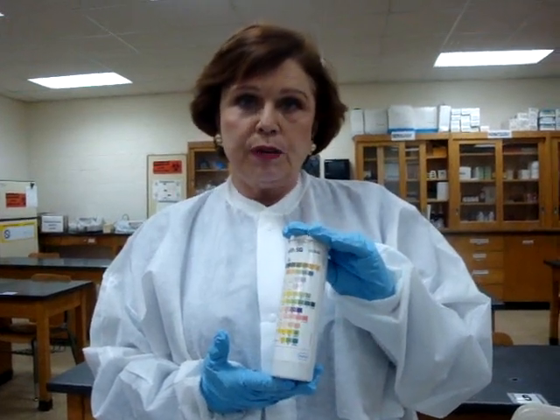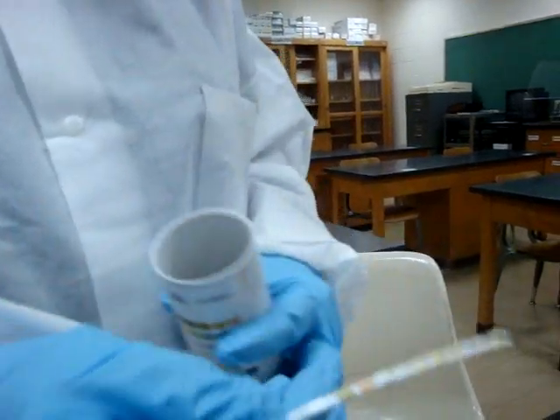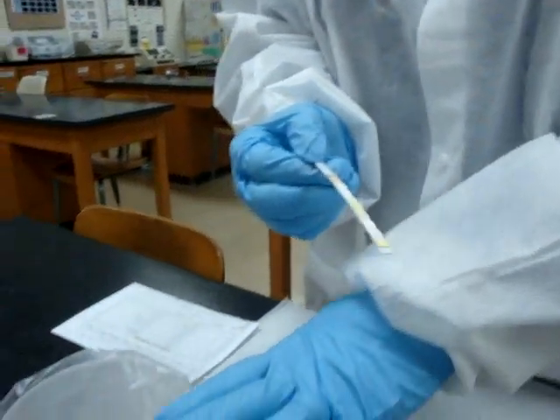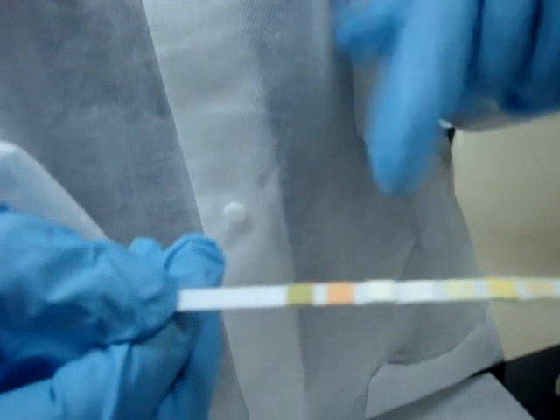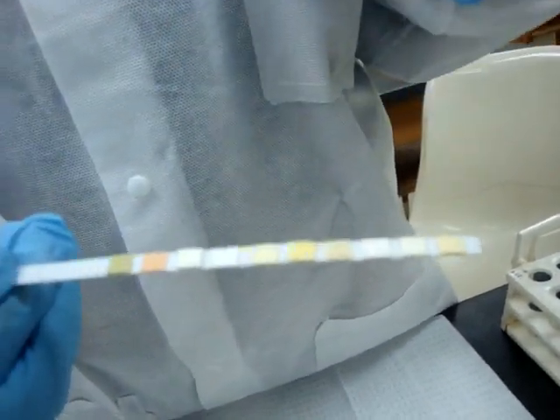These are the dipsticks that we use. When we use a dipstick, we want to open up our container and remove one dipstick at a time, then close our container. It is very important we keep our container closed so that we don't get any moisture in there, because moisture will actually deteriorate the chemicals that are on the strips. If we look at the strip, we will see that there are little square pads, and each one of these pads contains a chemical.